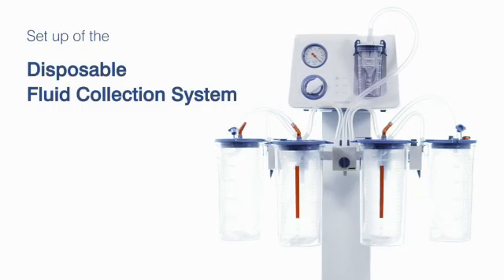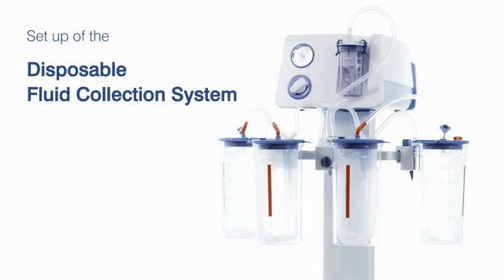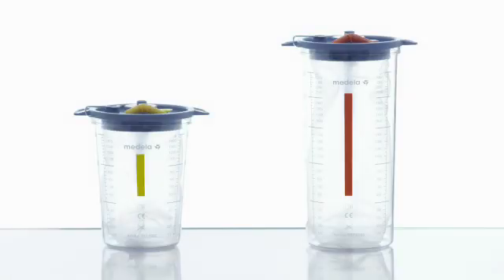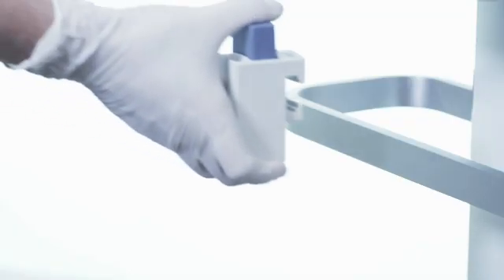Setup technique for the disposable fluid collection system. The disposable fluid collection system comes with 1.5 liter and 2.5 liter accessories. For this demo we have selected the 2.5 liter option which is clearly distinguishable by the orange branding.